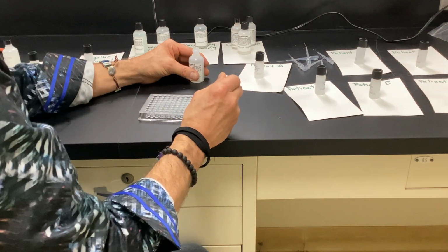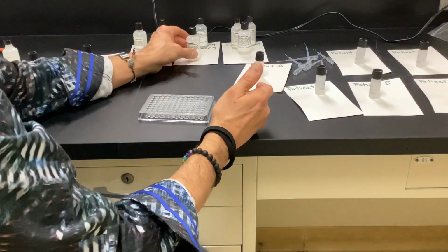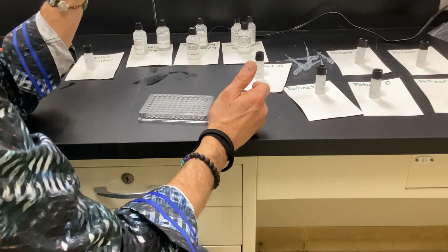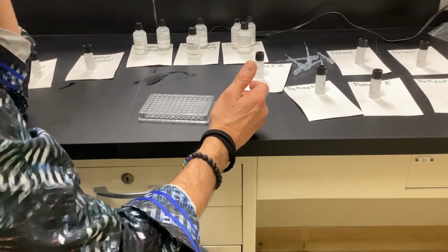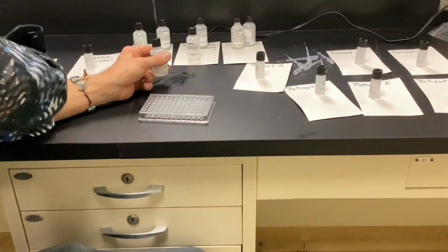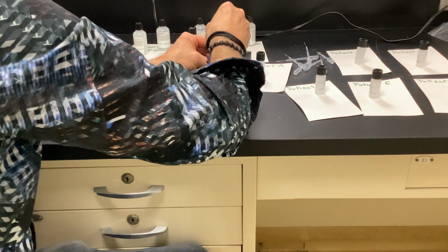So I have antigen in all of them. I have positive control, negative control, and patient's serum in each one, and then I just added the secondary antibody to attach to the antigen-antibody complex if it's present. It has to be present for one or two of these patients to have actual exposure. All right, so what's the last step? Chromogen. And what's this going to do? Change color. Initially it should be what color? Green. These are so good.